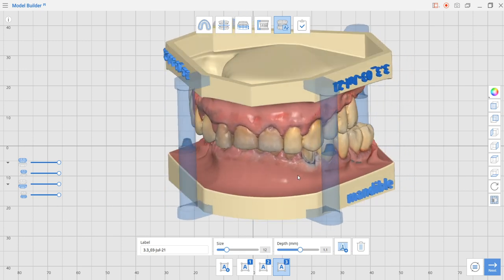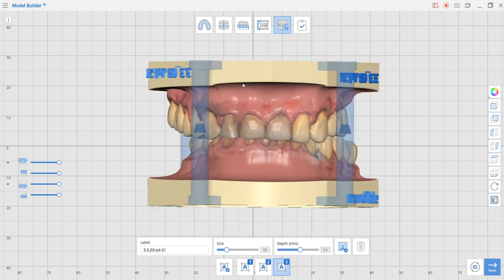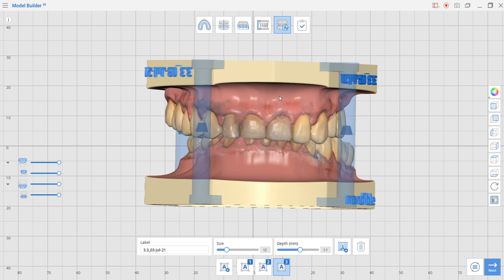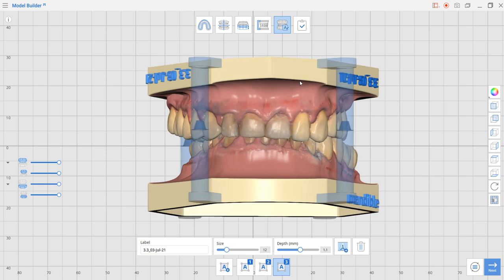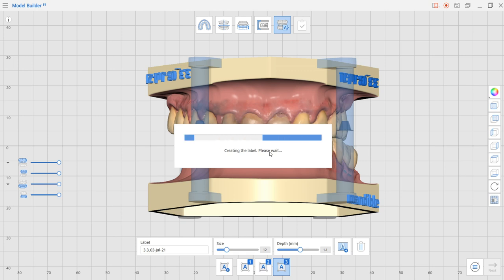Now that we've played with this function as well, we have everything we need. By pressing the next button we're going to tell the program to integrate all the pieces together: the model base, the attachment, and the text as well. Let's just do that and now the merging of the model begins.